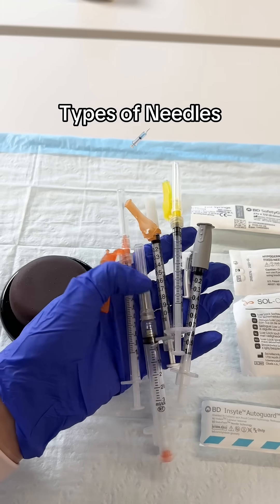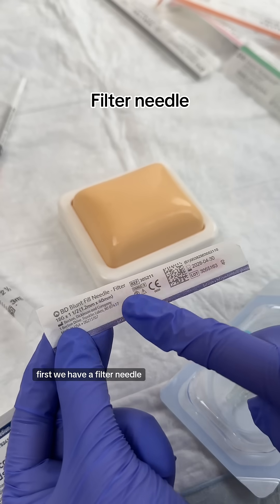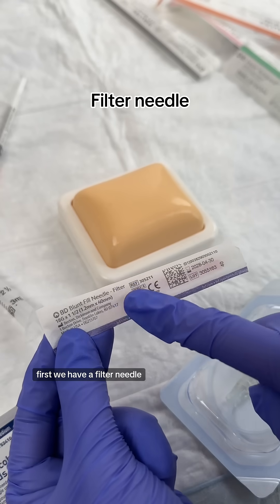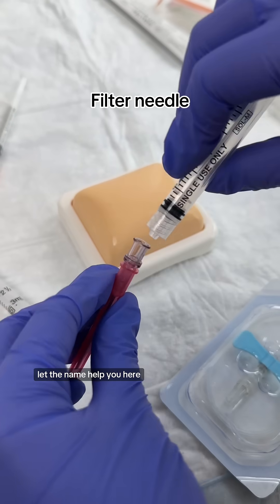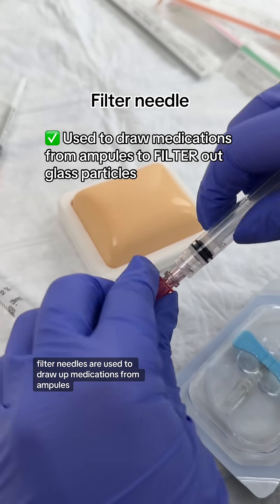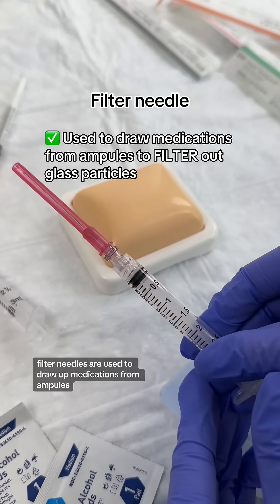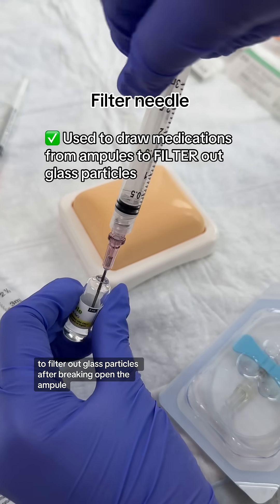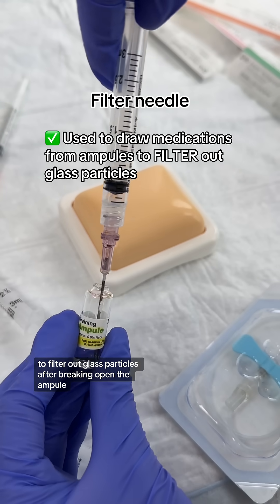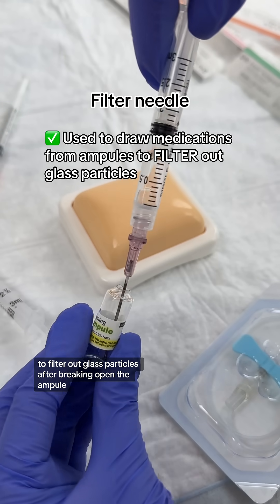Let's talk about all the different types of needles. First, we have a filter needle. Let the name help you here. Filter needles are used to draw up medications from ampoules to filter out glass particles after breaking open the ampoule.